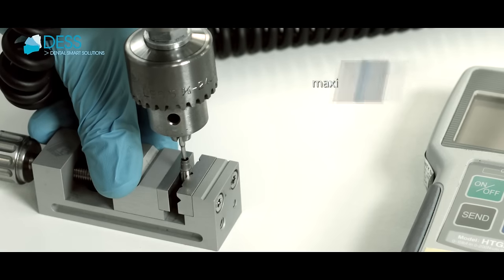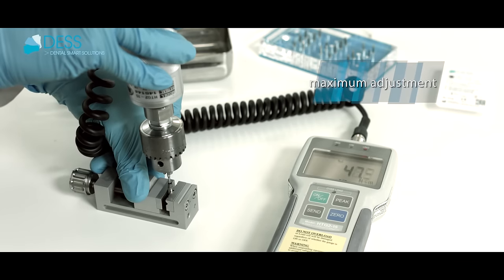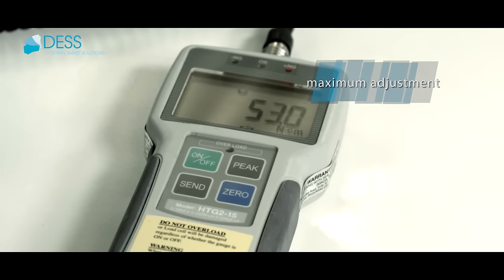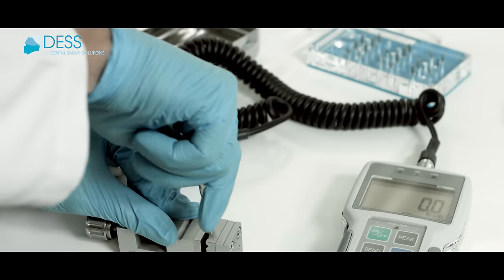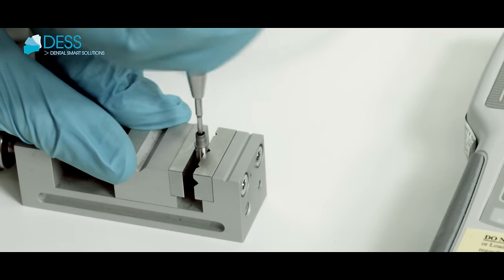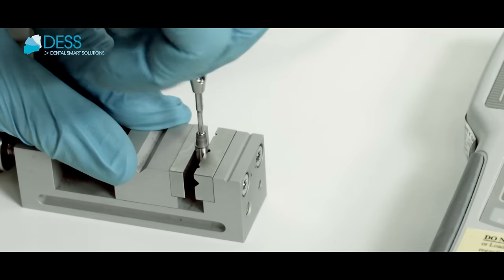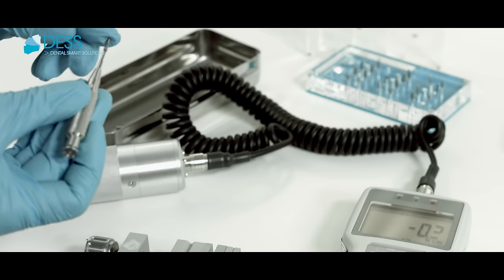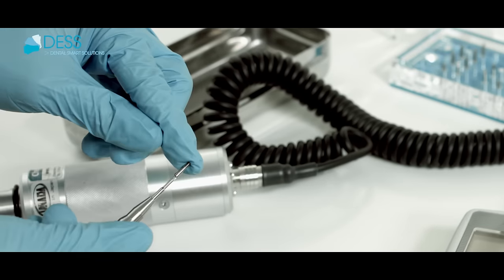The designs and their tolerances guarantee problem-free adjustment of the different prosthetic solutions and the implant to which they are attached. Integrity and soundness of the screws is guaranteed by stress tests of up to 150% of the standard torque settings.